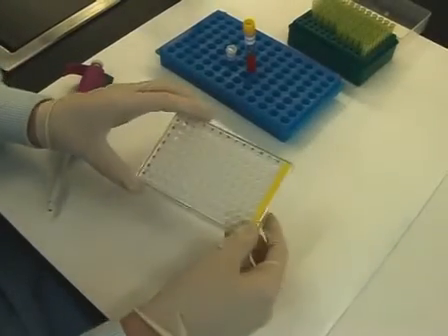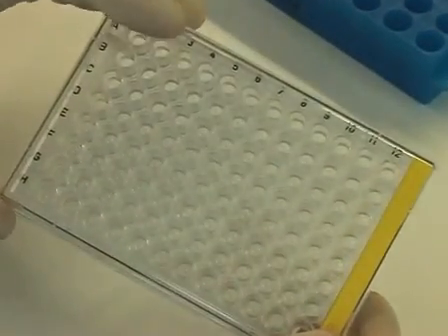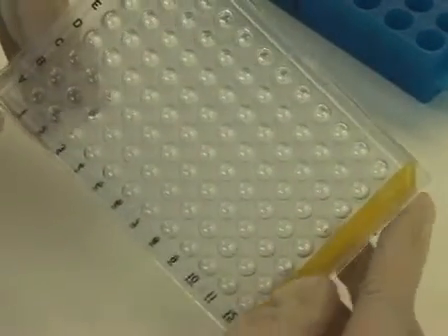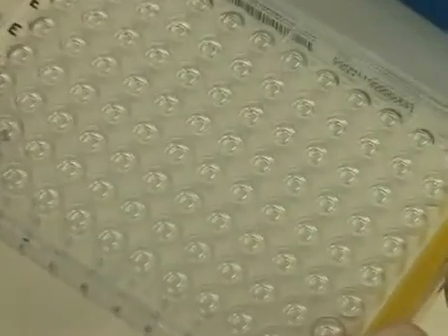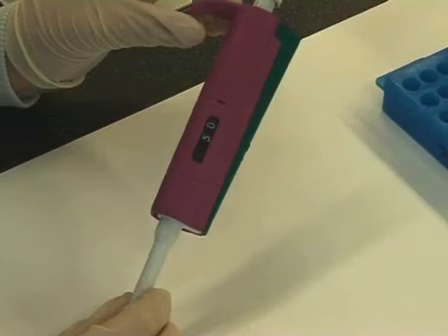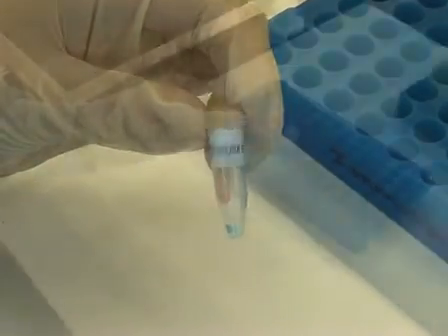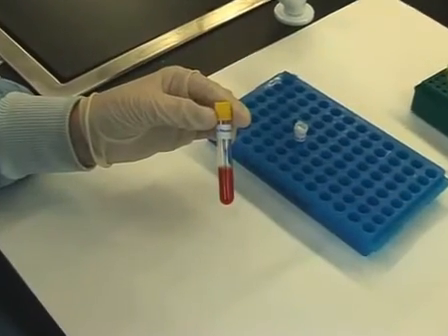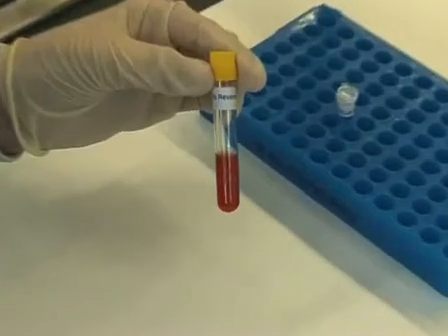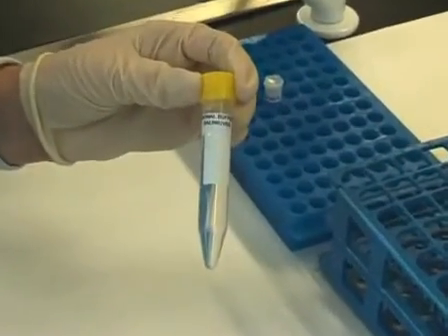For this experiment, you will need one 96-well U-bottom plate. It is essential that a U-bottom plate is used, since flat bottom plates will not allow the cells to sediment into a pellet, making interpretation impossible. A pipette able to deliver 50 microliters. Test serum. A 1% suspension of RBC cells. And a one-times solution of veronal buffered saline.